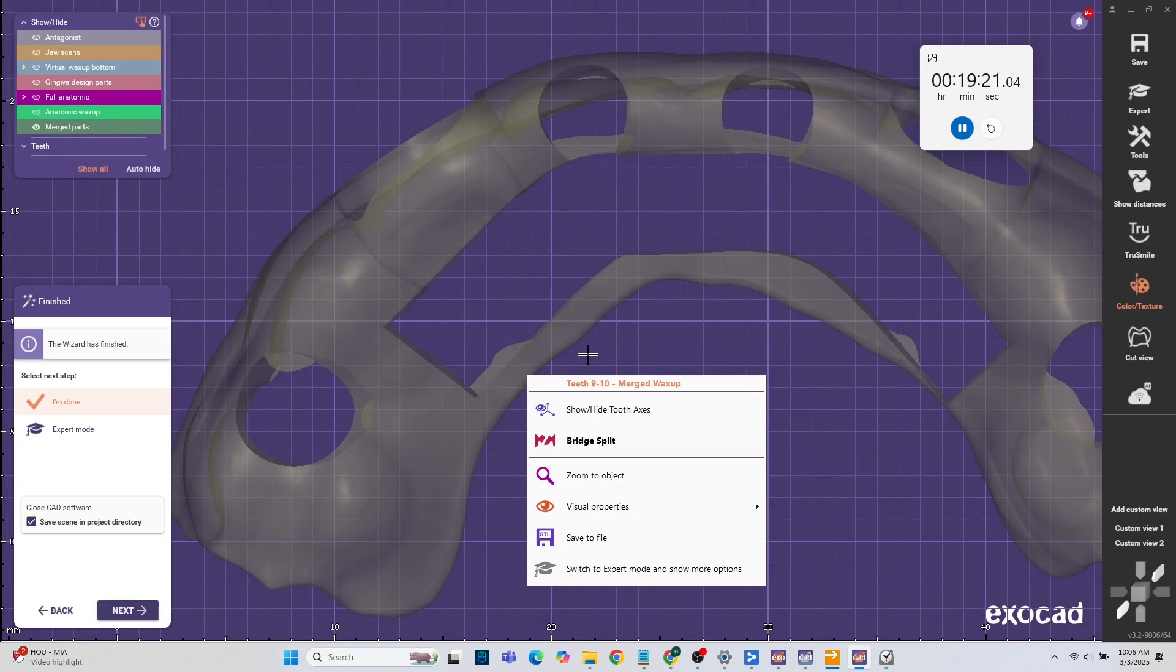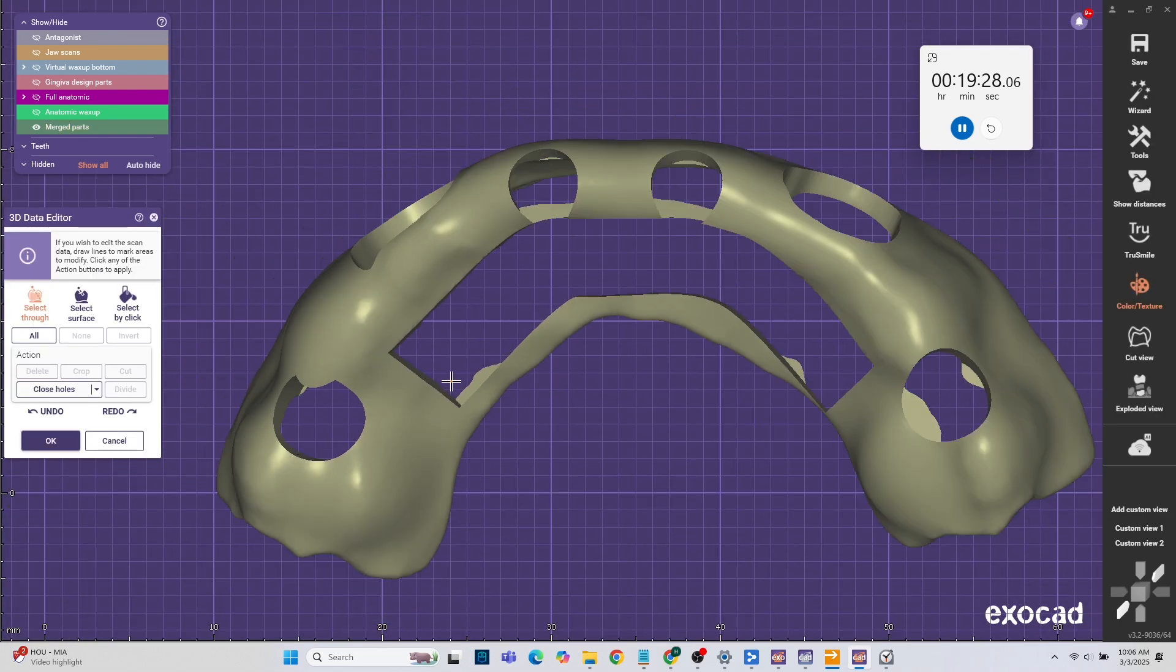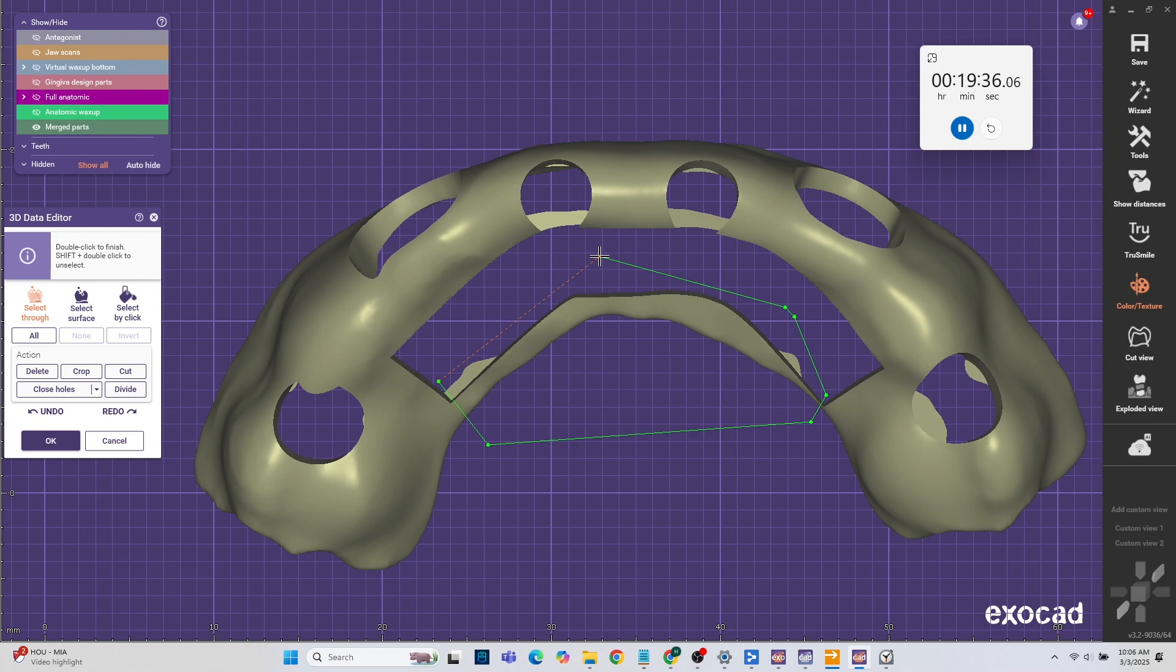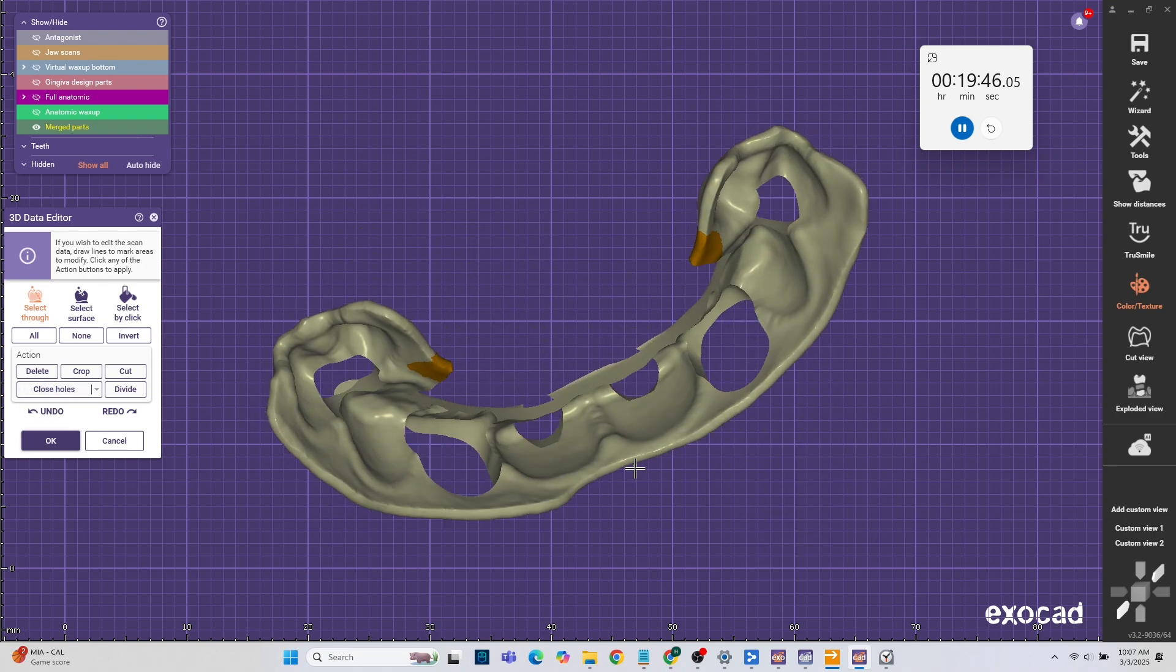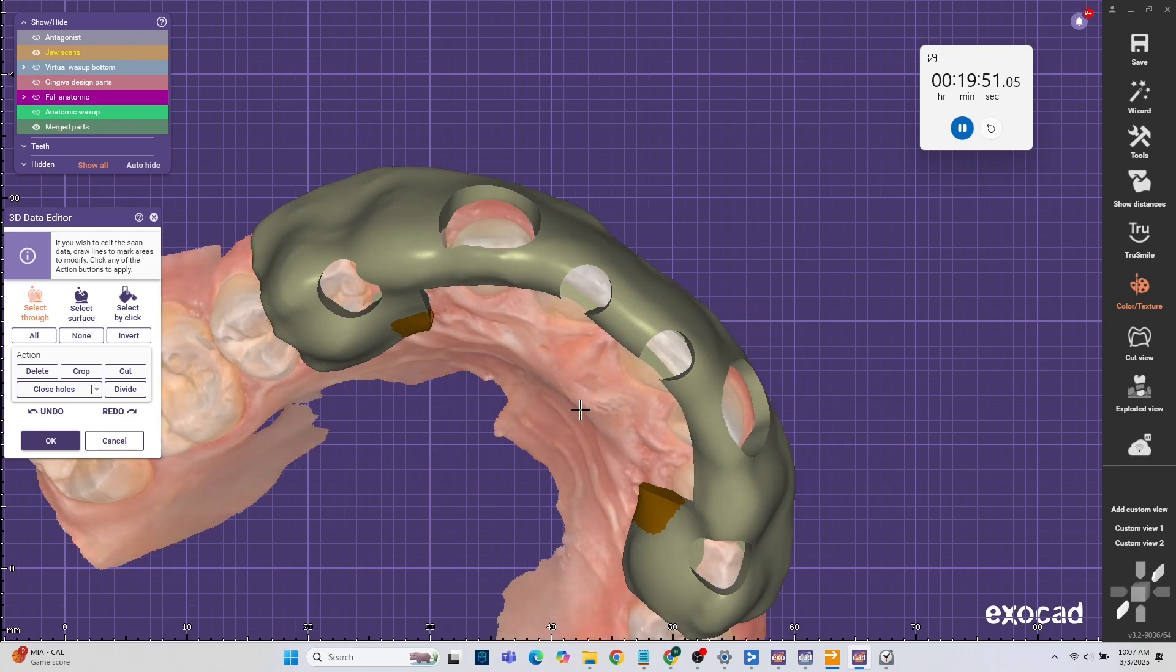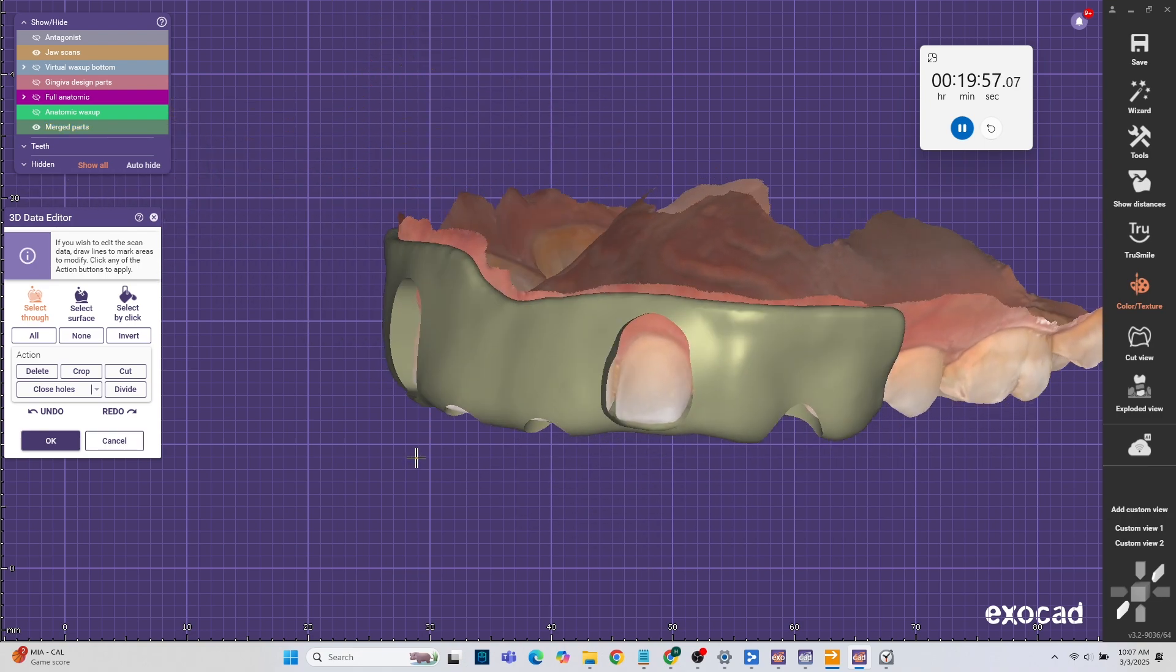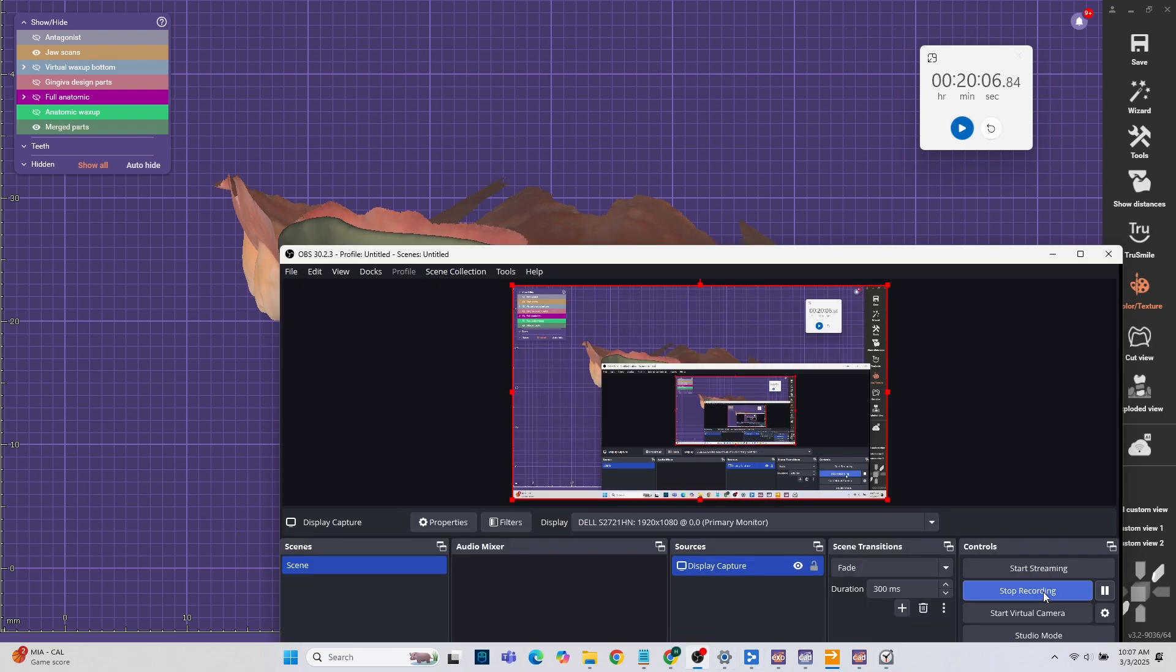I actually want to get rid of that little bridge thing in the back. So I'm going to go into expert mode, hit on the STL that I want to edit, hit edit mesh and try to delete that. Delete it but it's going to leave a few holes so I'm going to go back in there, select it again, close holes and bam, one solid mesh. That's it. Just hit ok, you're done and it'll be in the folder and now you sprint that's it. That's it. That's it.